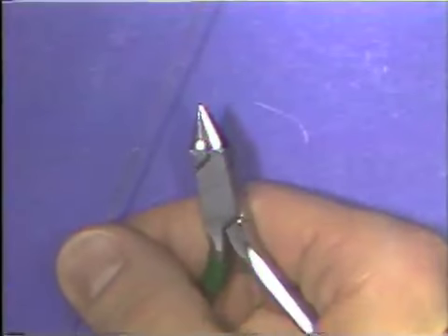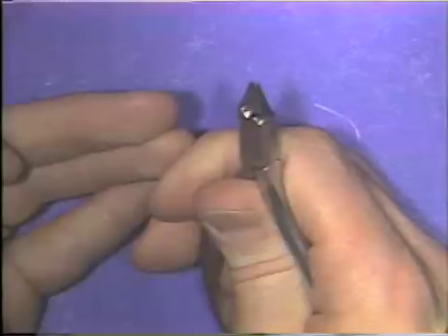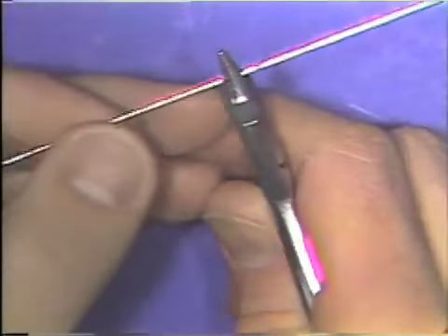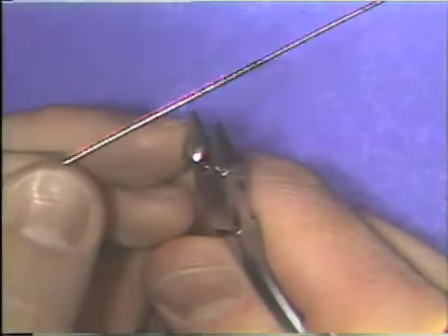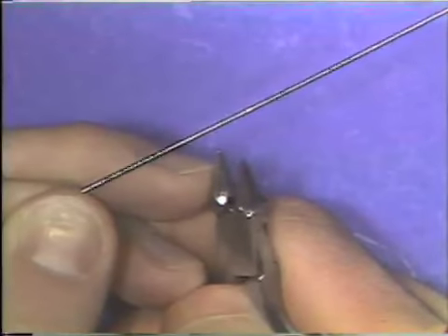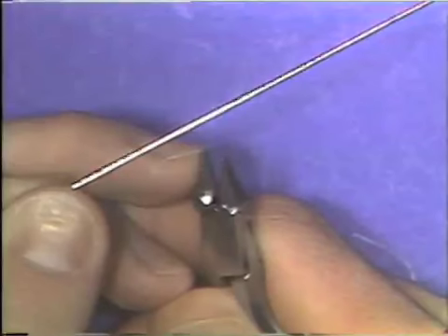To bend a wire with the 139 plier, you hold the plier in your right hand, if you're right-handed, with the round beak away from your chest. You place the wire in the beaks of the plier. Now, it is important when you place the wire in the beaks of the plier that the diameter of the wire that you're bending is smaller than the diameter of the region of the round beak that is grasping the wire. A plier might be damaged if a large wire is bent at the fine tips of the plier beaks.